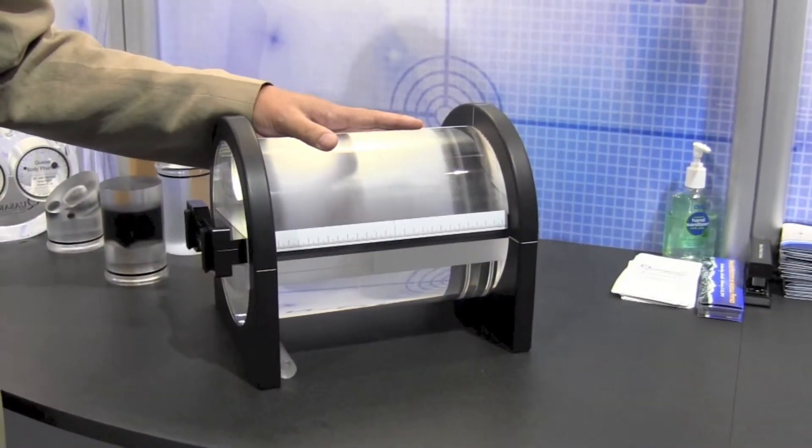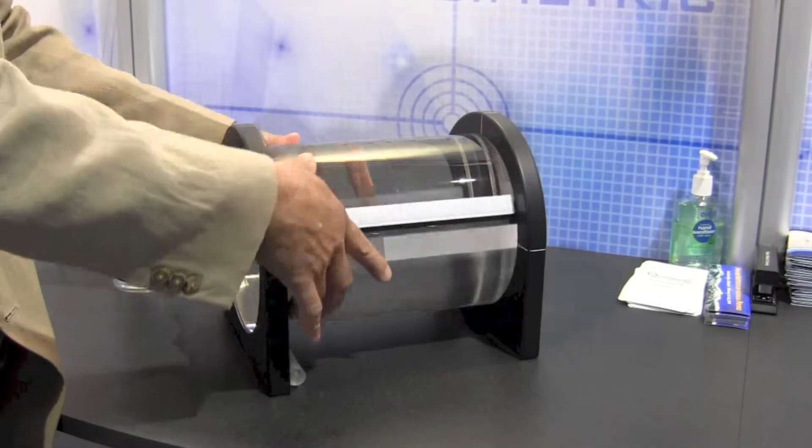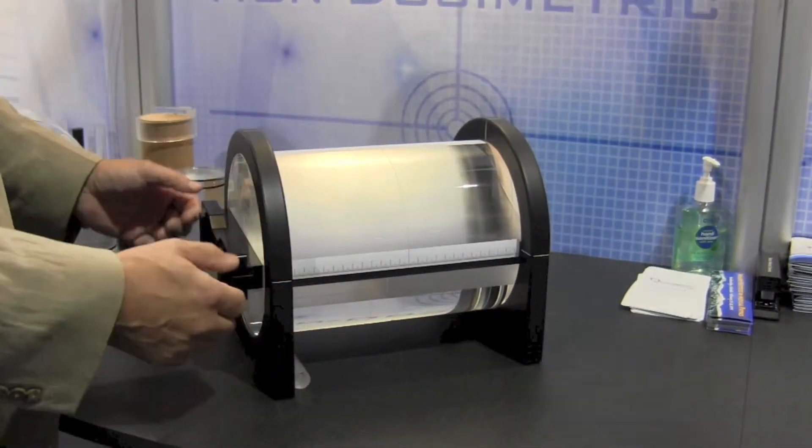This is the verification Phantom. As you can see, the Phantom is cylindrical and it can be turned to any orientation.